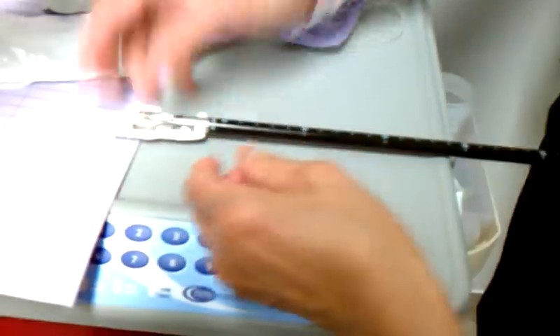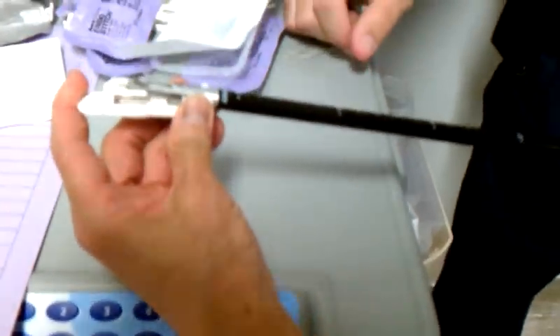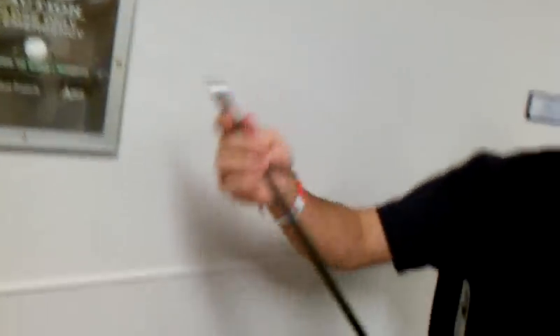So you can peel it out. I peel it out, right? Yep. So now go ahead and squeeze the handle by pushing this down, and let go of the handle.